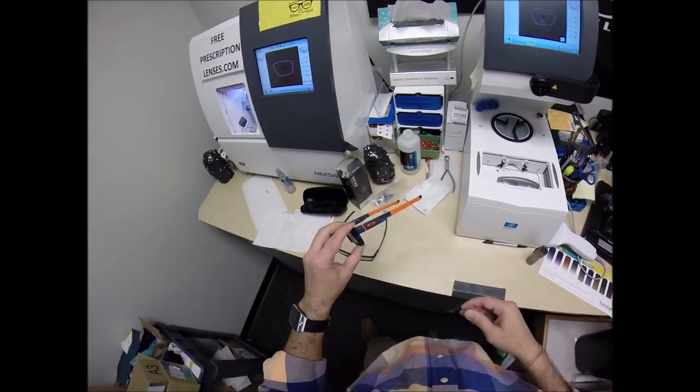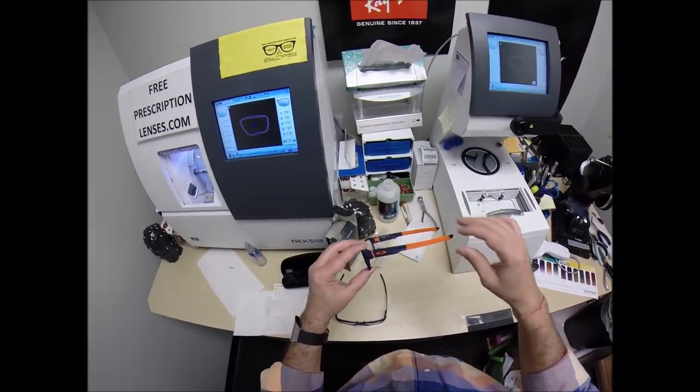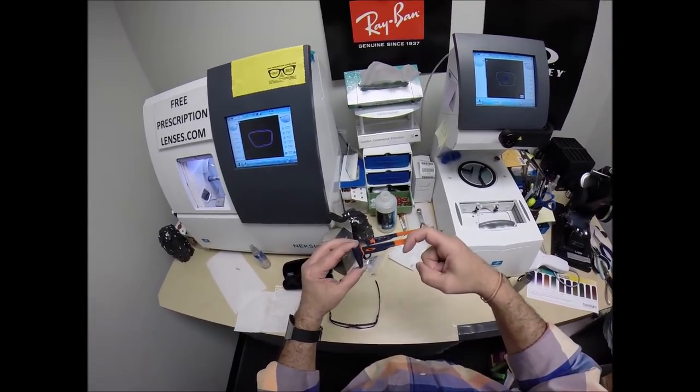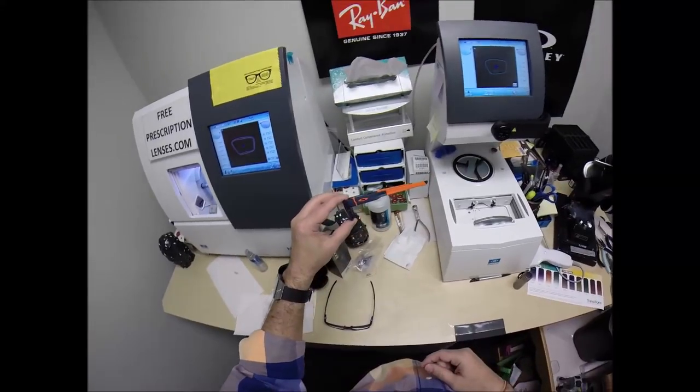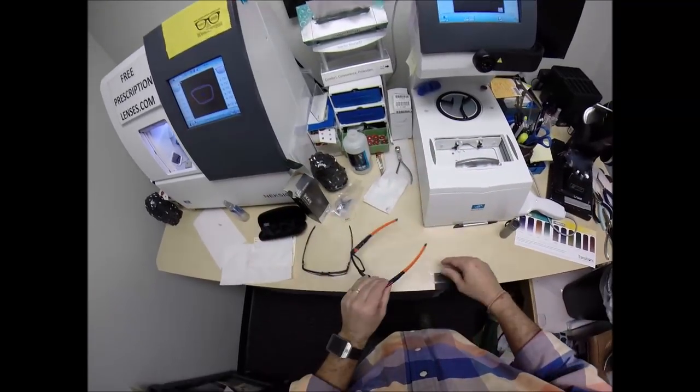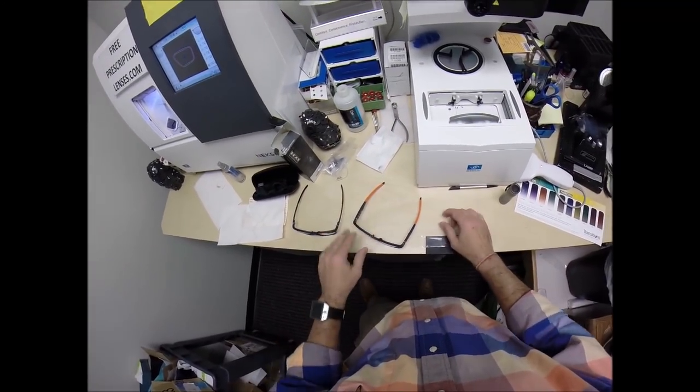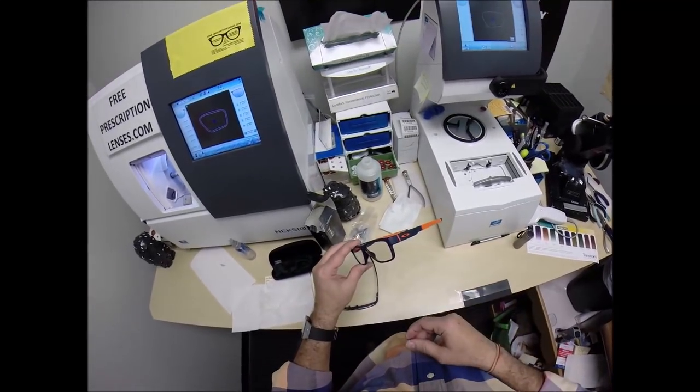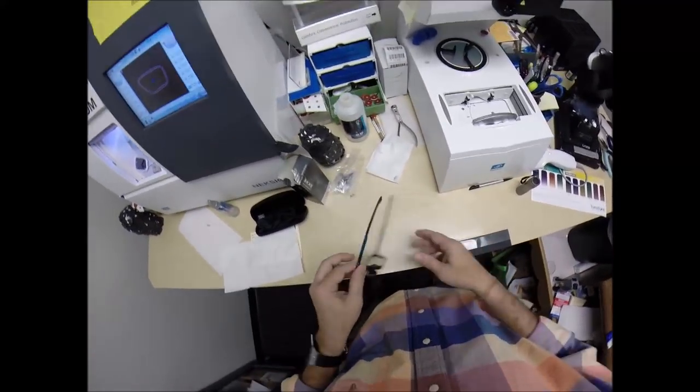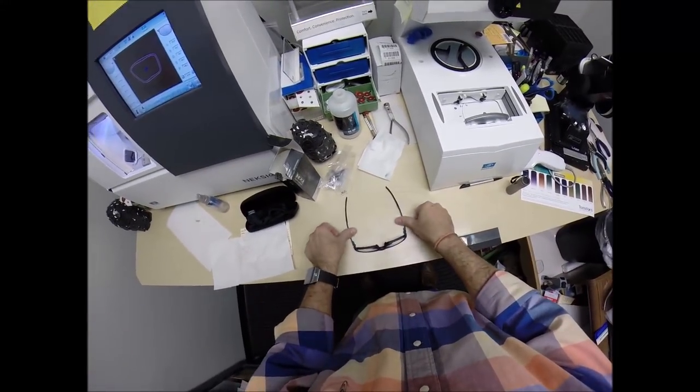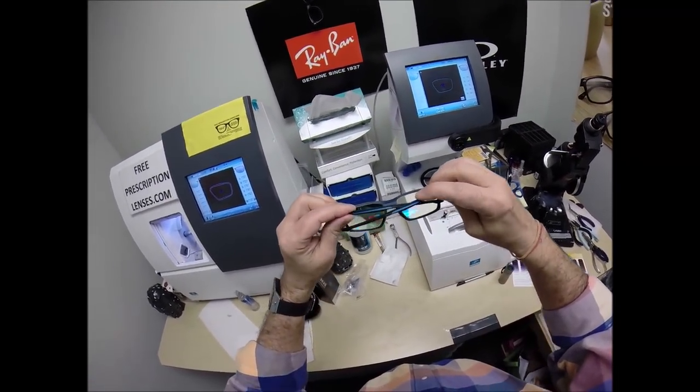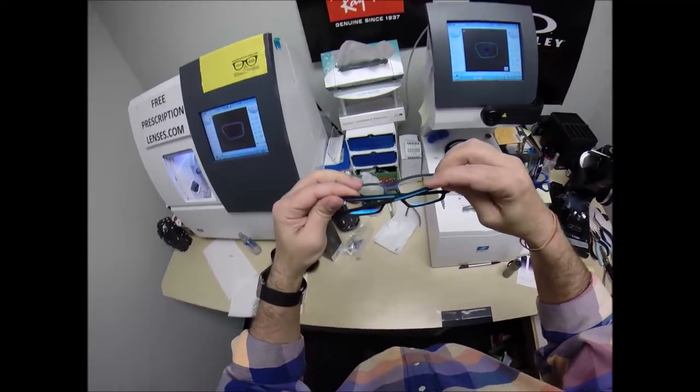There is an 80% chance that one side of these are going to sit higher than the other because 80% of people have one ear that is higher than the other. And because of that statistic, 99% of all optical shops will do free adjustments if you ask them. I'm going to get these in standard alignment first. The three points are one, two, and the bottom of the frame being three. I set it on the counter and pressed down. There is no wobble.